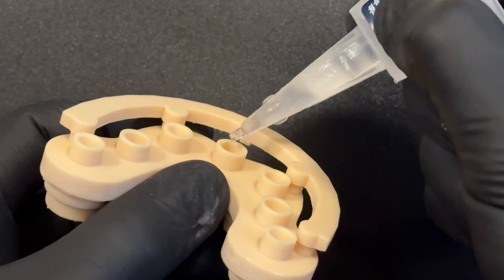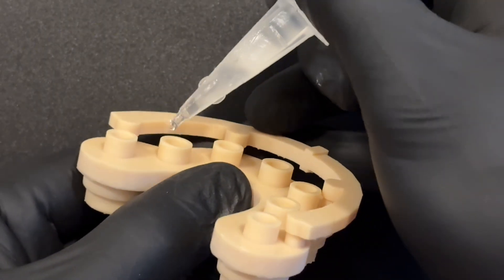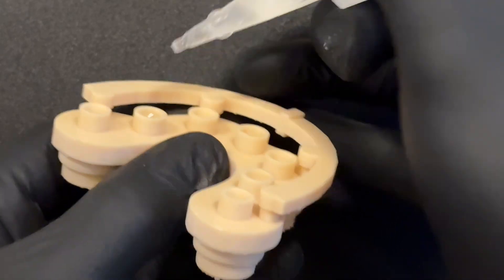After this, you can secure the magnets using adhesive to create a magnetic system, or alternatively, you can fix them temporarily with wax or elastic.